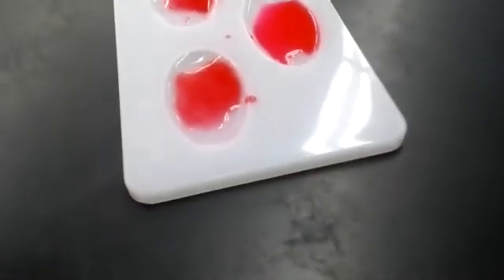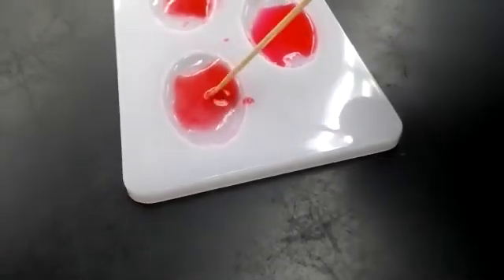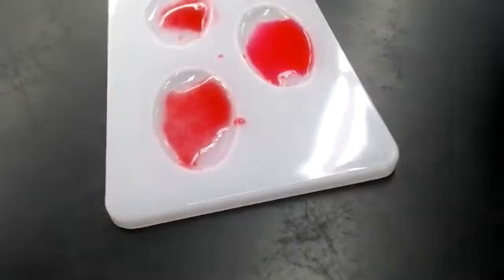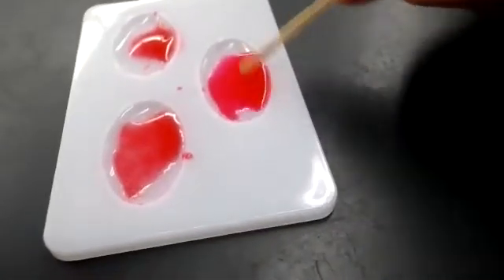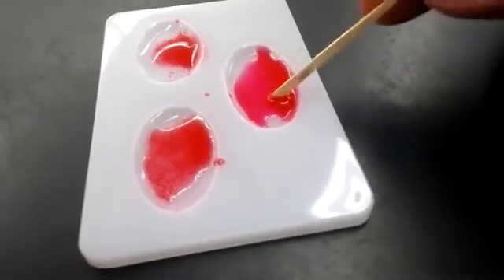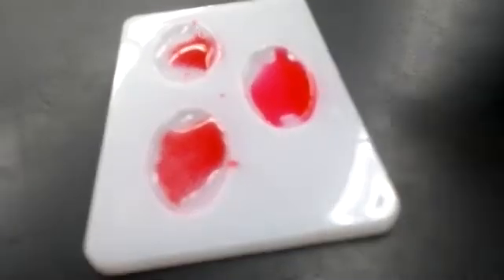The B, which is down here, this one also has some dots in it. Oh, there we go. Now we can see it. Okay. You can see that there's some little red dots in there. So that would tell us that it's agglutinating as well. And then the RH factor, which is over here, this one is showing nothing. Okay, that one's very clear. So what that tells us is that we have no agglutination here.